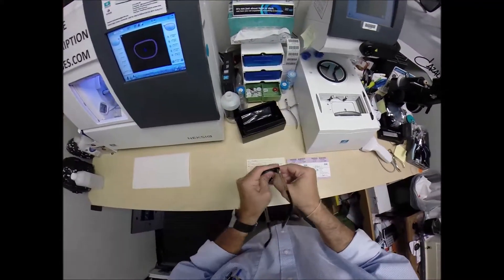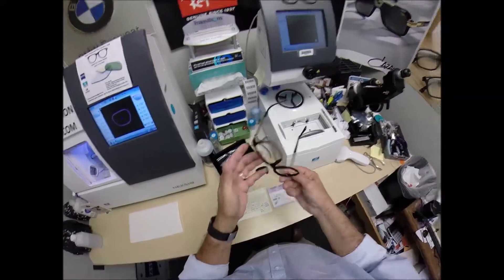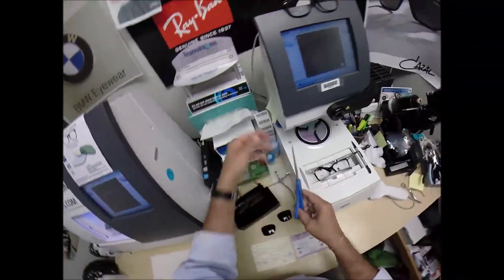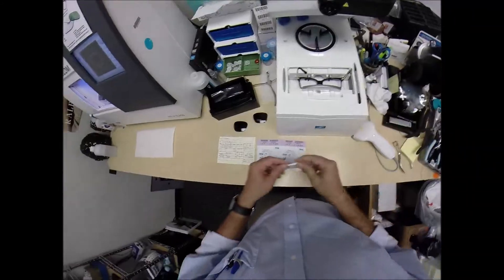So, I'm going to pop out the original demo lenses that you will be receiving. I'm going to put your frame into the tracing element of my blocker, but first, I need to assign it a number. UR, Secret Agent 2709.